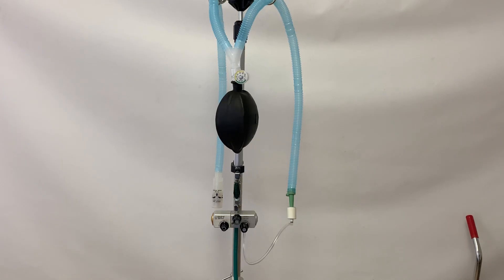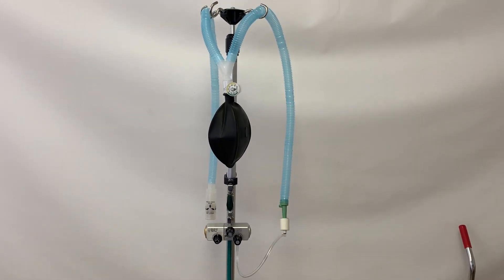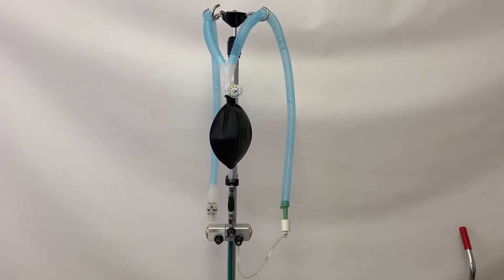The JD Medical Mark II utilizes no electricity, fits in the palm of your hand, and we can easily ramp up to produce them in extremely large quantities.